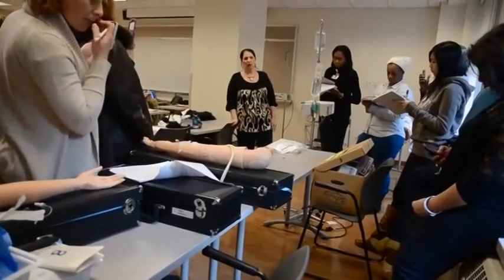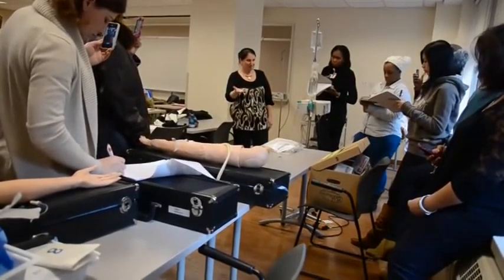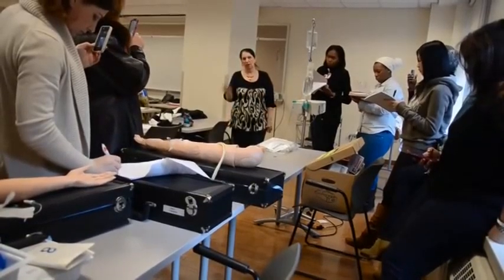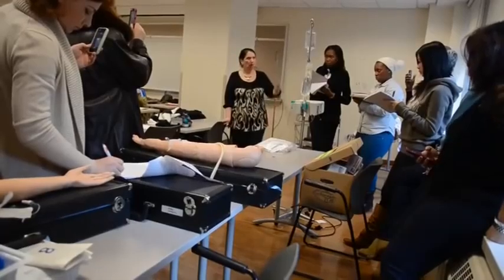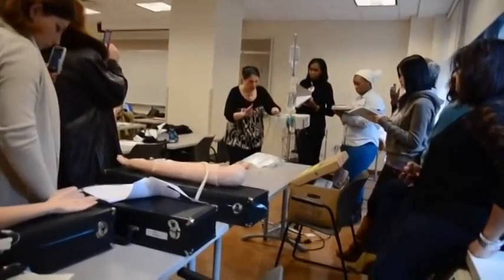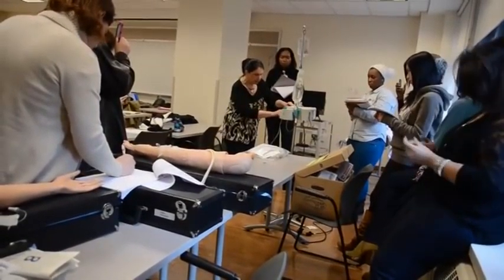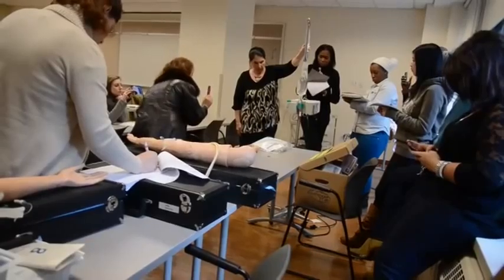Now I have to go and touch the machine, because the machine is going for this one — not for the antibiotic. So now we have to use the 60. I have to say 100cc's in the bag times 60 divided by the number of minutes. A lot of students say they can do it in their head because 100 times 60 divided by 60, the 60s cancel out — it comes to 100. If you want it to run in a half hour, you have to double the rate: 100 times 60 divided by 30 equals 200. It makes sense — you want it to run faster, you increase the rate. Then press piggyback, press rate, put the rate in — 100 — volume to be infused — 100 — and then press start.